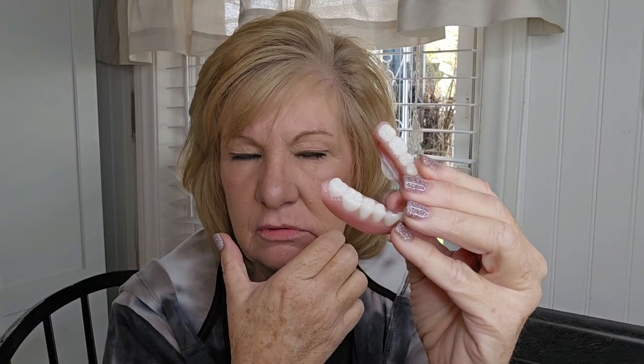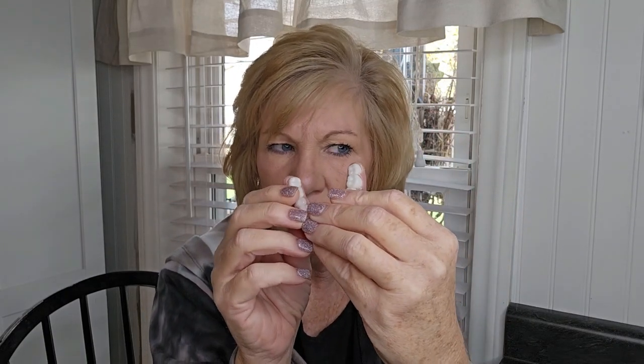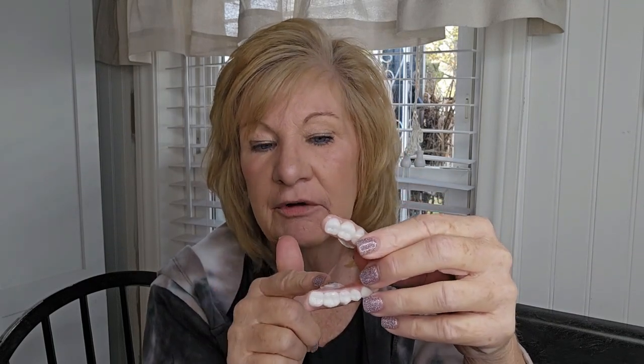Okay, we're back. Here's my consensus: I like this thing. It adds fullness to my lower. The rocking part — this denture isn't going to rock. That's what I don't understand: when you put a soft re-line in a denture it's going to fit you good and it shouldn't be rocking. So this adds stability to it, and it's called Stable Dent — it adds a little bit more stability to what you already have. It's not jamming my tongue, and if it did I would file it down.